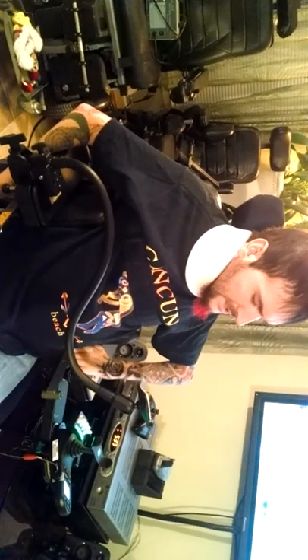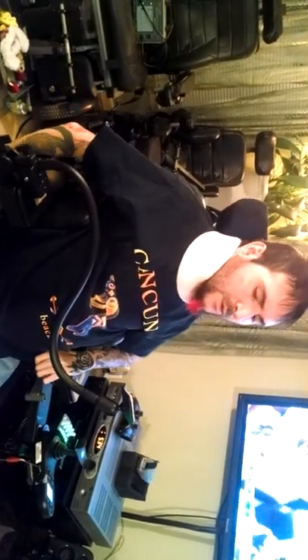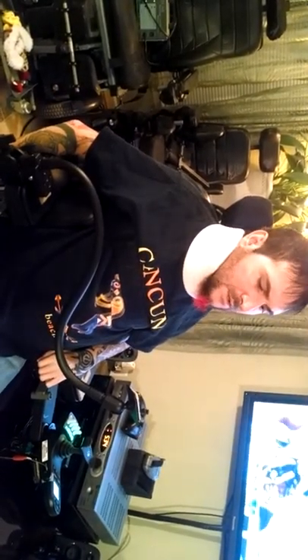If you don't like that, you should probably just get the third arm that comes from here and attaches out up to nine inches, or the Roboarm on their website. A lot more expensive, but it's worth it.